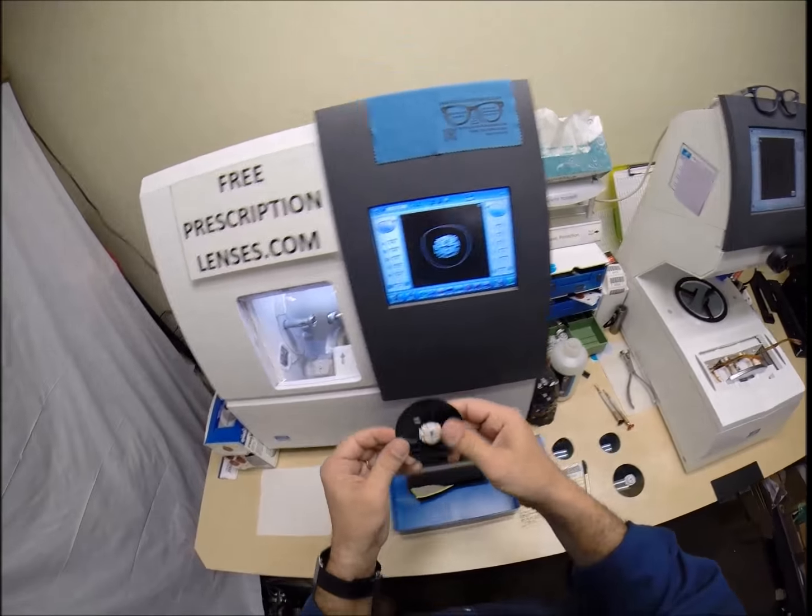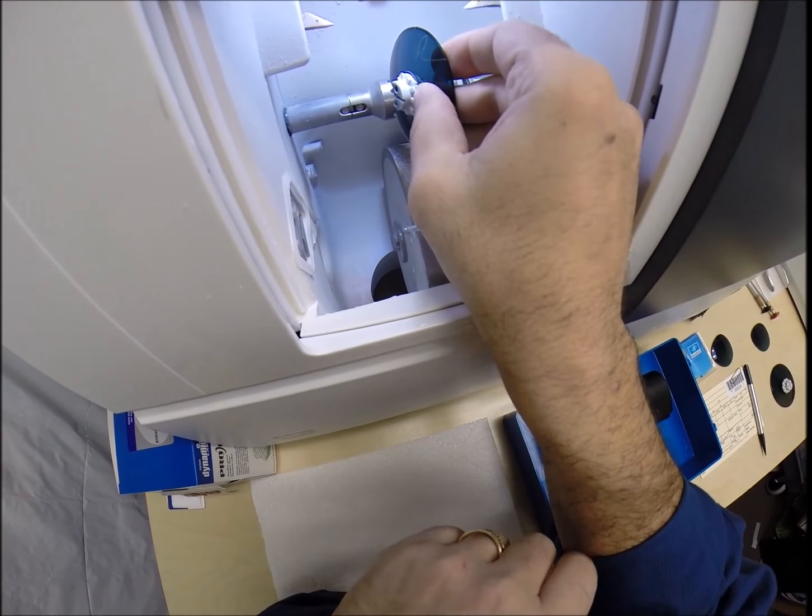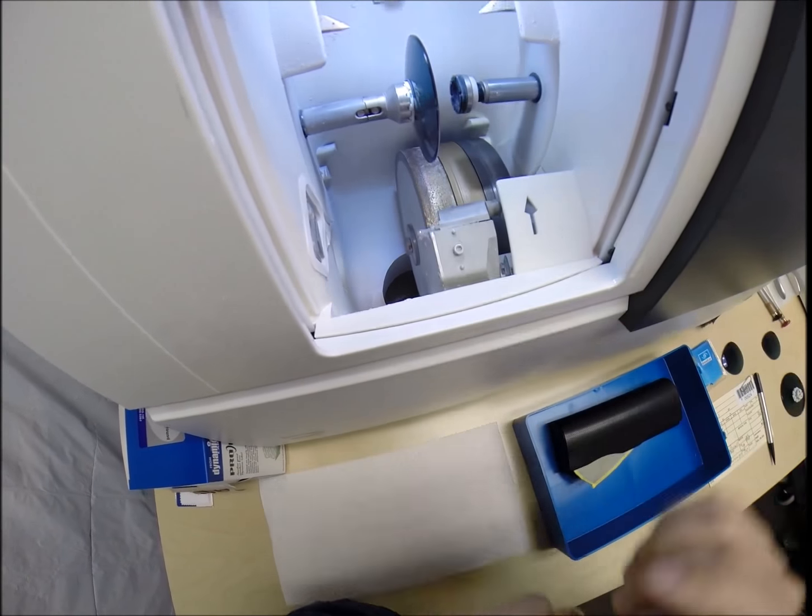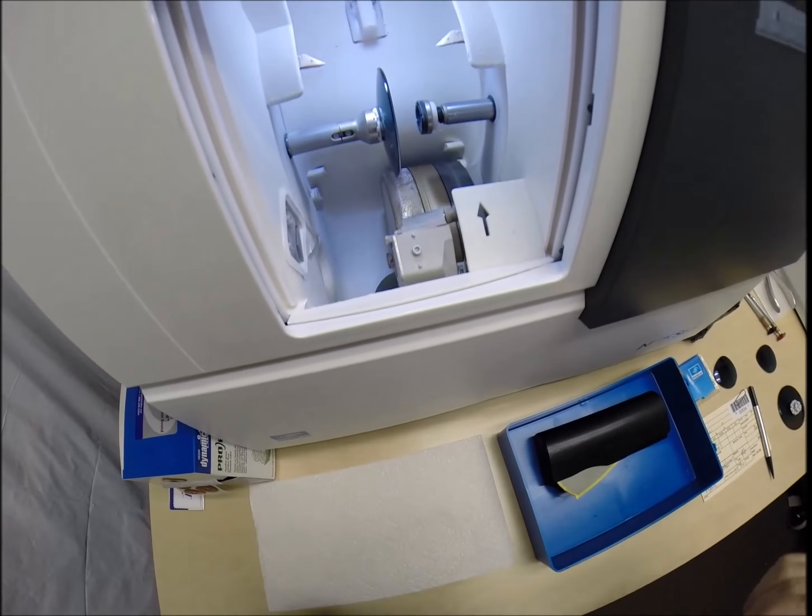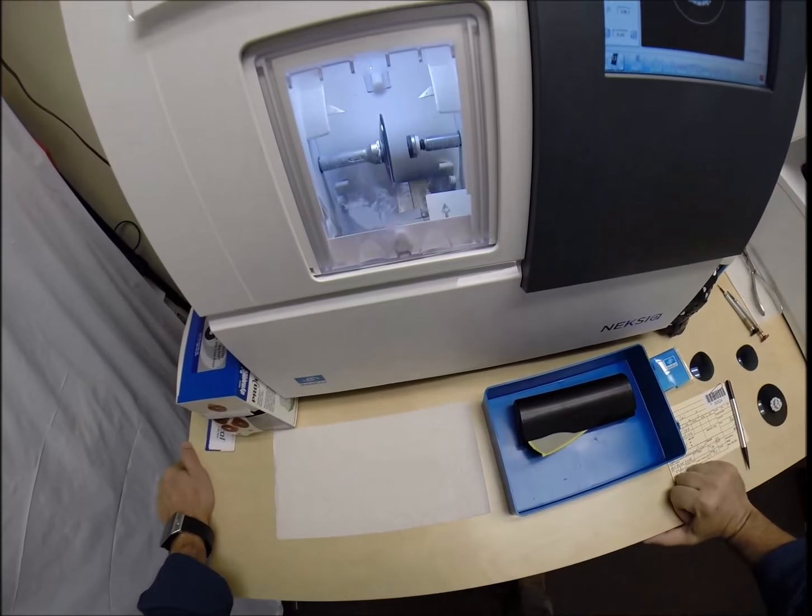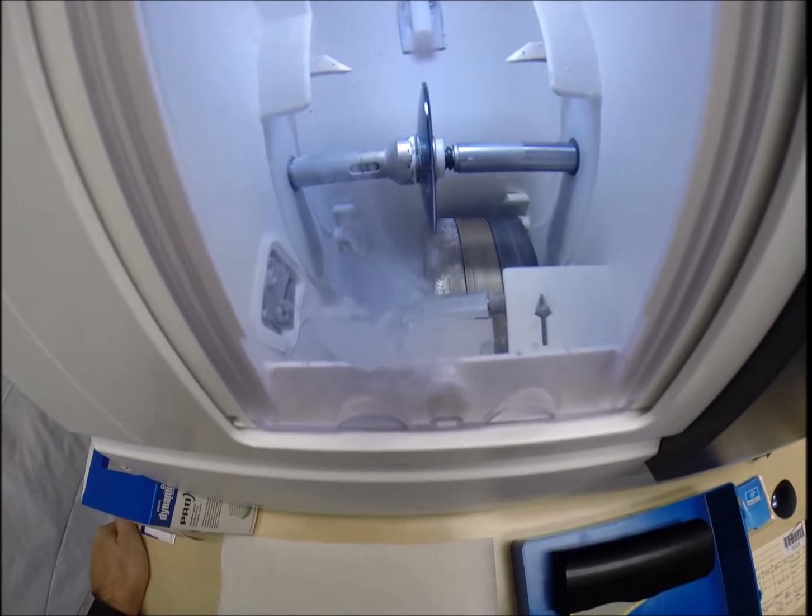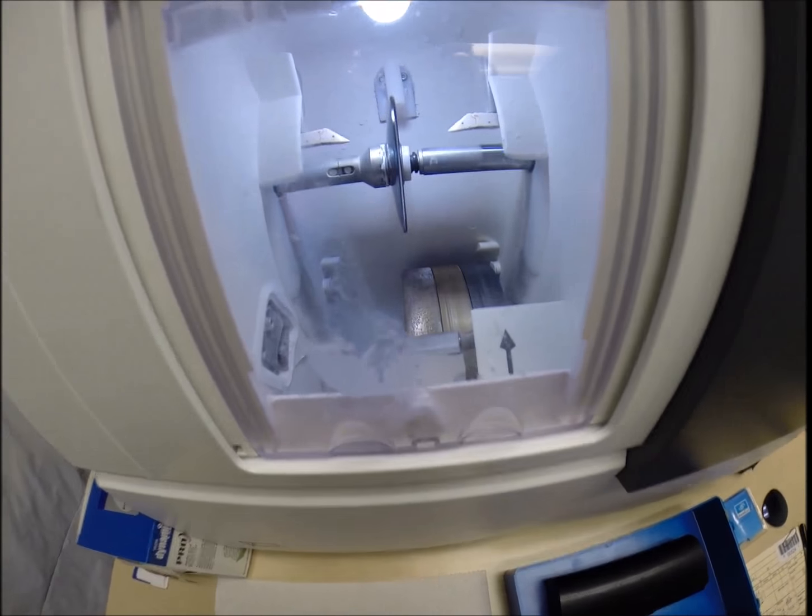I'll put a very light bevel on the rear surface of the lens. Press that on there firmly. Now, the magnet's going to do its job a second time. It's going to attach itself to another magnet in the chuck, or as I like to call it, the charl, because I don't know this machine well enough to call it chuck. At the green arrow, which is start in every language, the door closes, the clamp shuts.